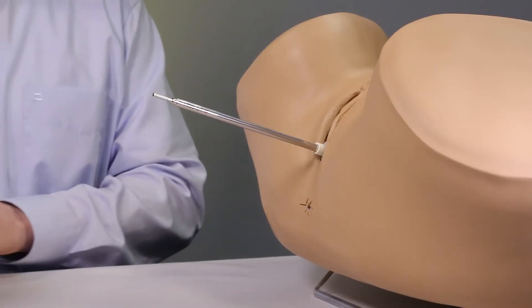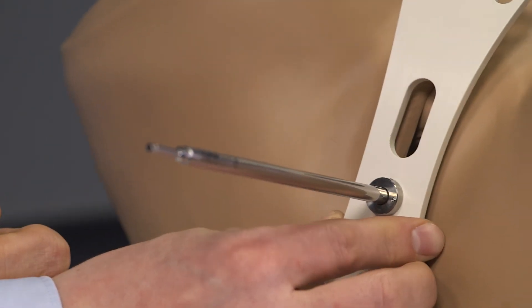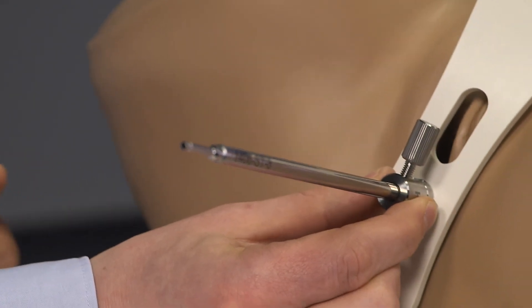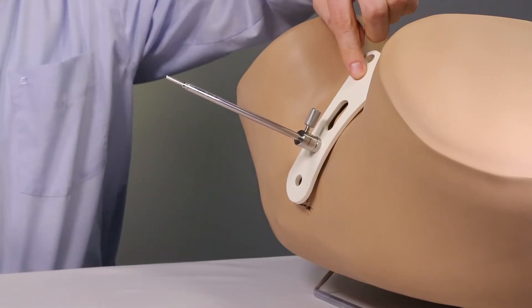The perineal bar is guided alongside the groove on the IU tube into position. Now the collet sleeve with the collet lock knob is also guided into position and can now fix the assembly. The assembly is now complete.